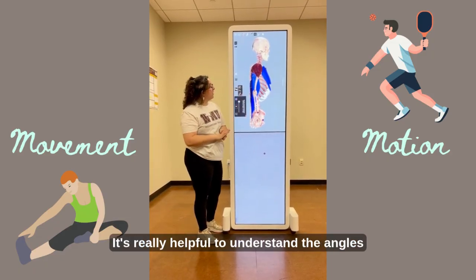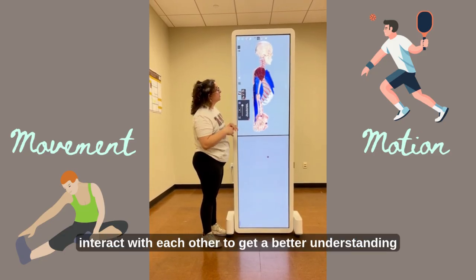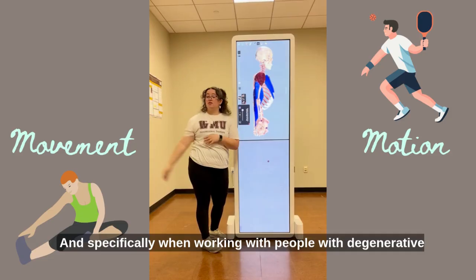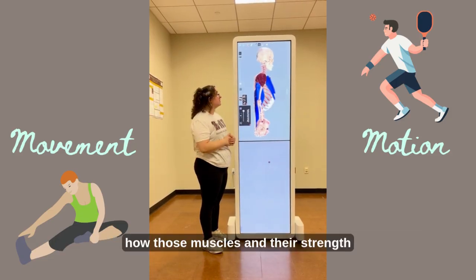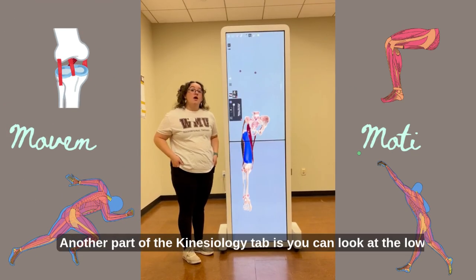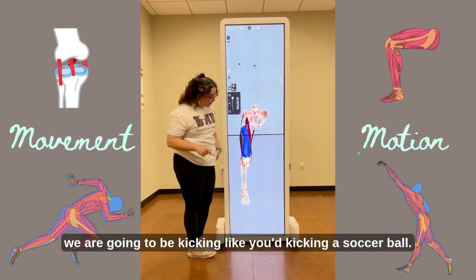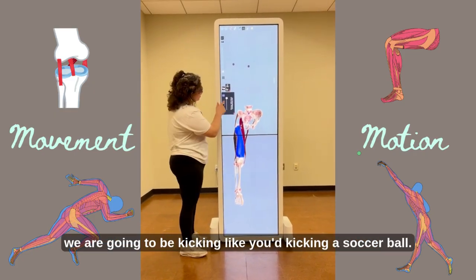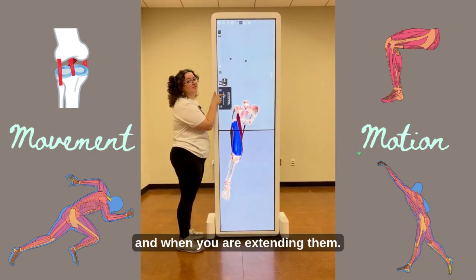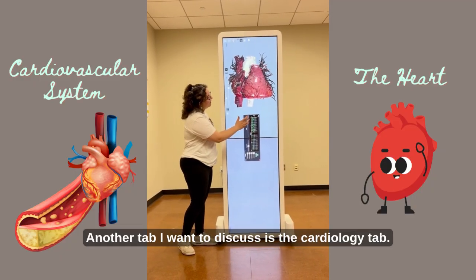It's really helpful to understand the angles and the different systems that interact with each other to get a better understanding of how your body moves, and specifically when working with people with degenerative diseases, how those muscles and their strength really impacts their function. Another part of the kinesiology tab is you can look at the lower extremities. So for example here, we are going to be kicking like you'd be kicking a soccer ball. So you can see those muscles that are being used when you are bending your knee and when you are extending it.